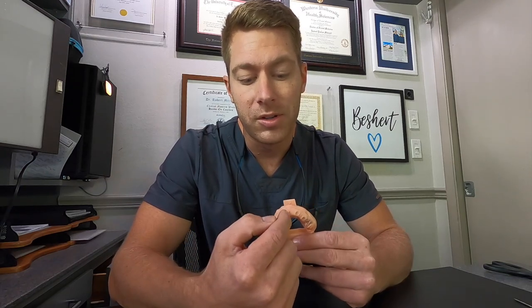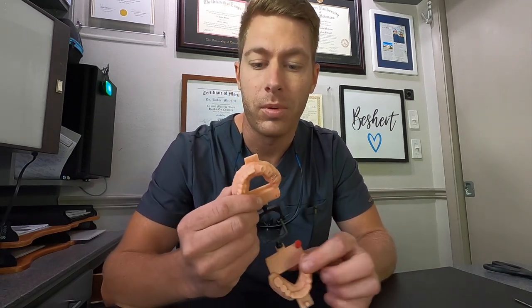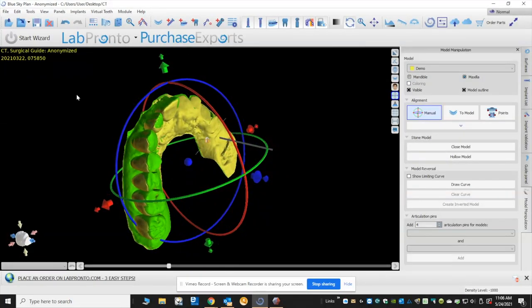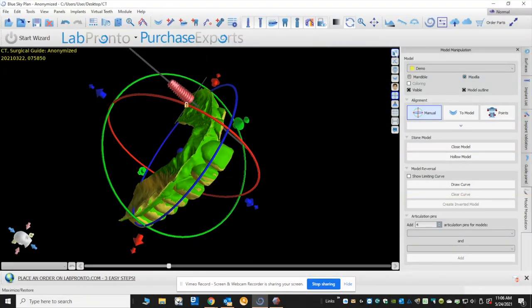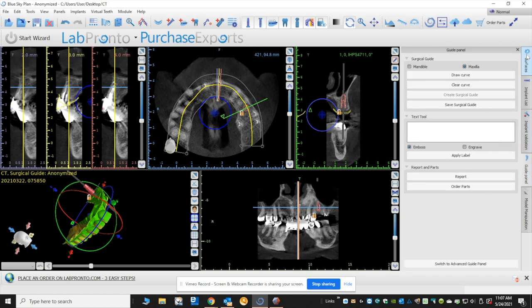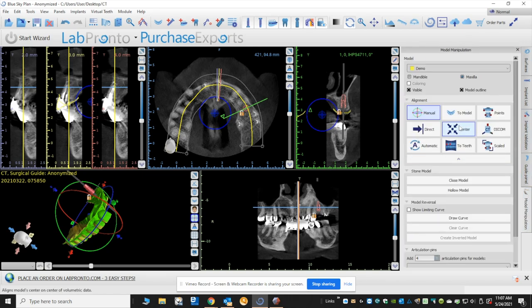So to start out I'm going to show you this is a patient where she is missing the top left side of her teeth. This is an actual case that we're in the process of doing right now. This is an exact 3D printed replica of her mouth. What I do is I get a 3D scan or take an impression and I have this printed. In a computer program I'm able to pull it up and place in the bone exactly where I want the implants to go. I combine the 3D image and the 3D x-ray together on a computer program and then design a surgical guide like this.